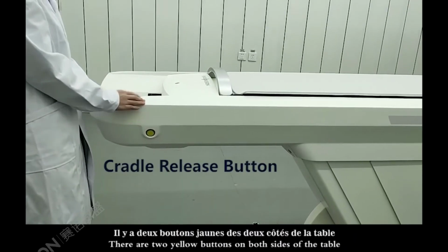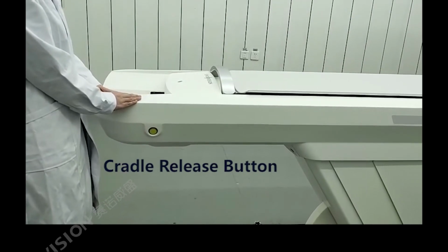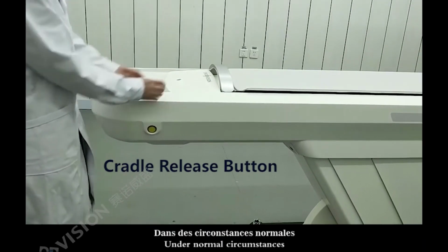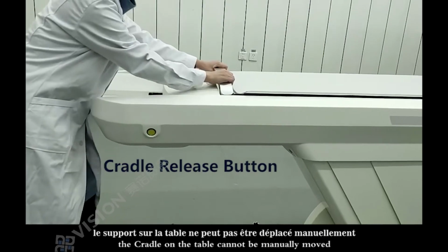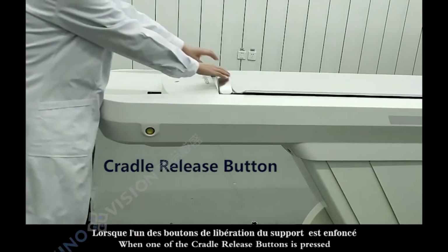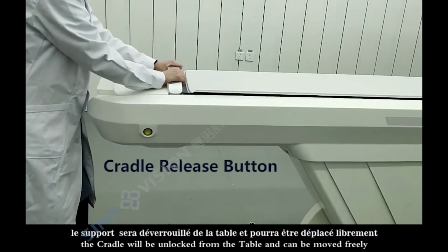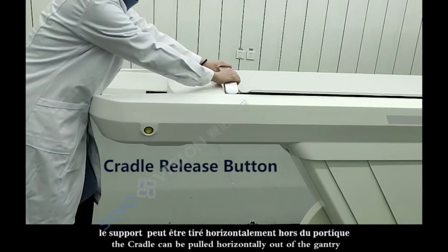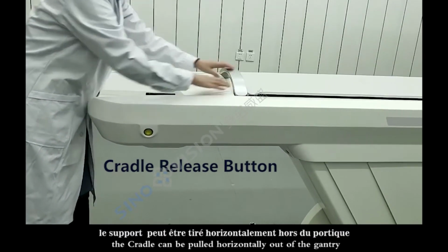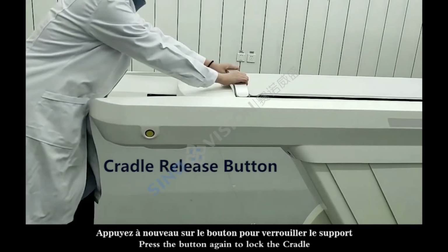There are two yellow buttons on both sides of the table, called cradle release buttons. Under normal circumstances, the cradle on the table cannot be manually moved. When one of the cradle release buttons is pressed, the cradle will be unlocked from the table and can be moved freely. Manually, the cradle can be pulled horizontally out of the gantry. Press the button again to lock the cradle.